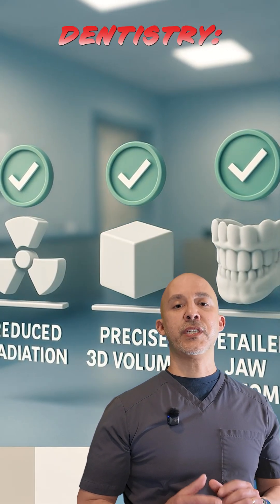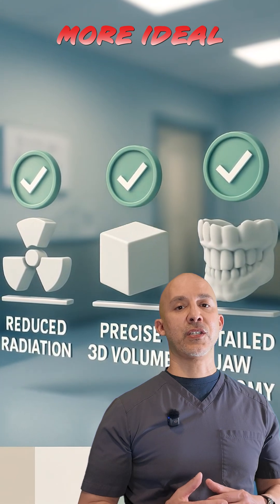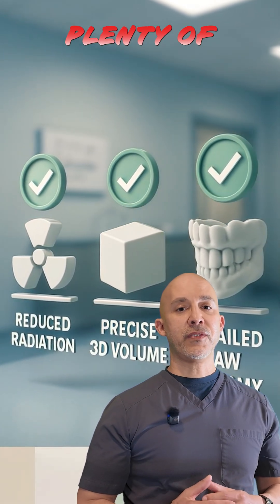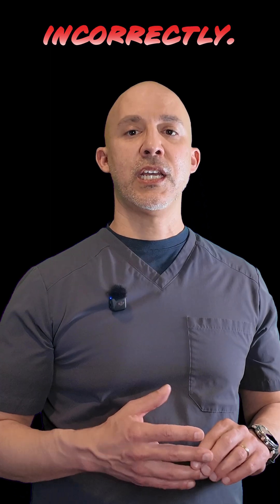CBCT: dentistry's go-to imaging for safer, more ideal care. But there are plenty of times it's not the right choice, or worse, it's used incorrectly.